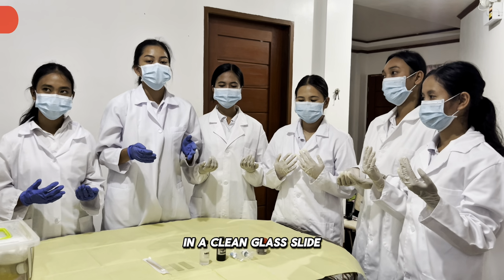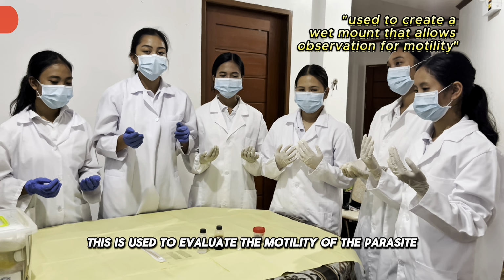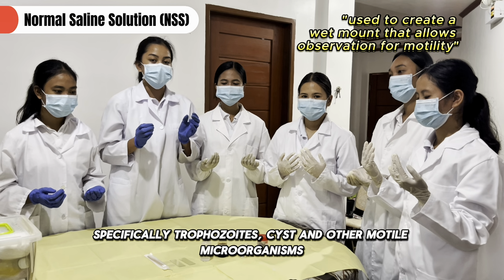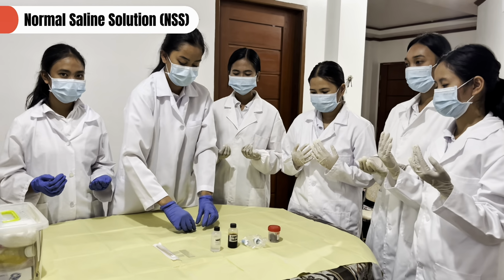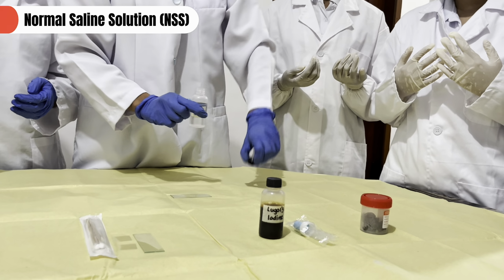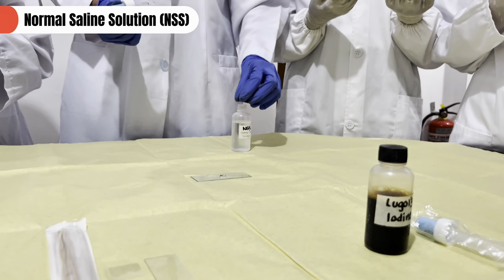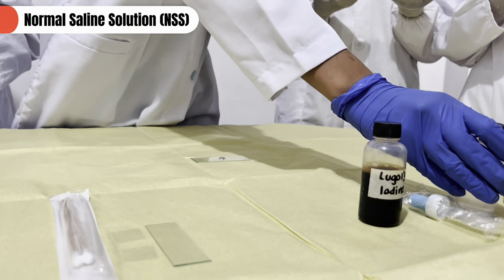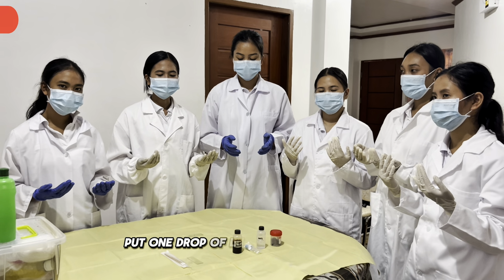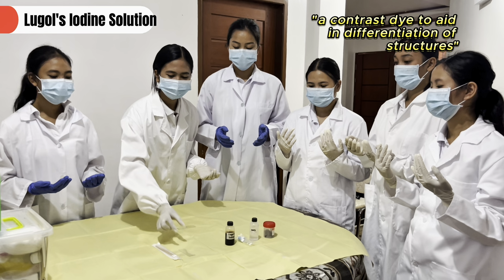In a clean glass slide, put 1 drop of saline solution or the NSS. This is used to evaluate the motility of the parasite, specifically the trophozoites, cysts, and other motile microorganisms. Then in another clean glass slide, put 1 drop of Lugol's iodine solution. This is to reveal the parasitic structure.